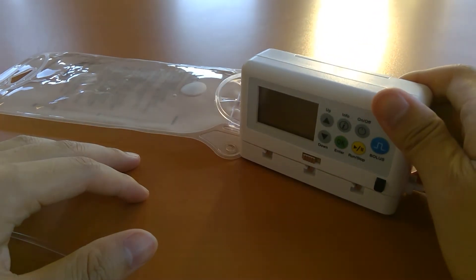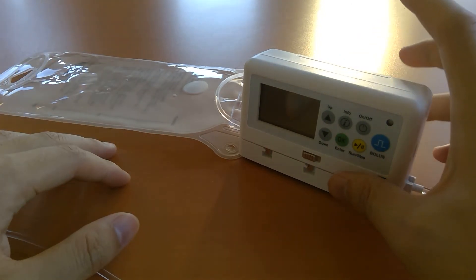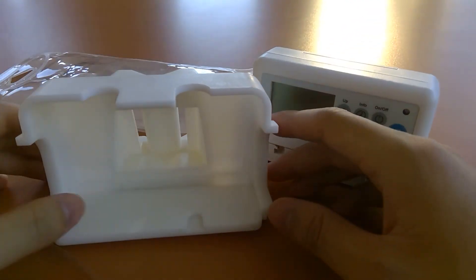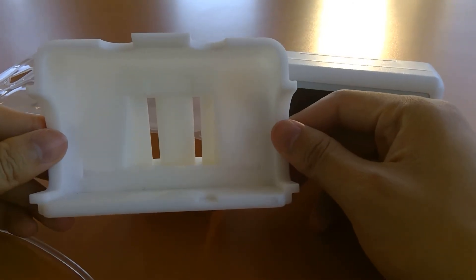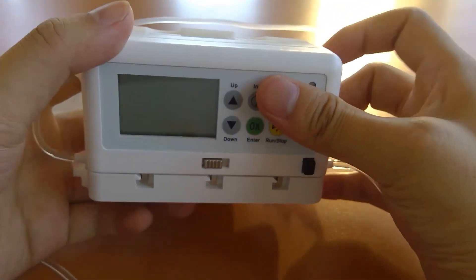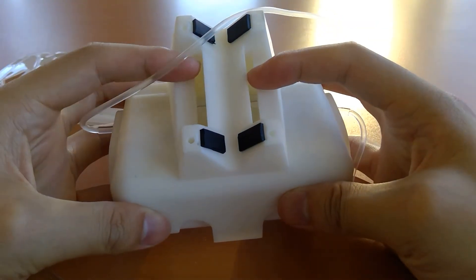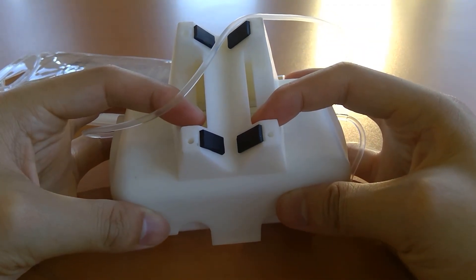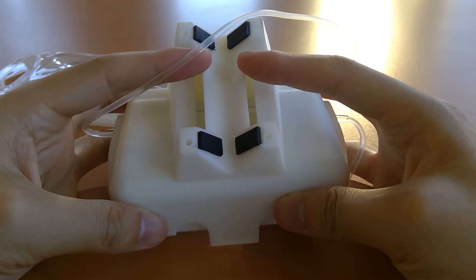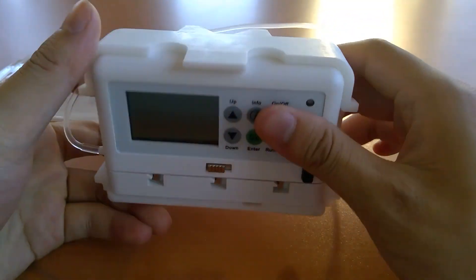Because the pump is so light, the impact weight is very low, so if you drop it or throw it against something it's not easily damaged internally. We also have a single pump IV clamp mount — the pump just slides in and fits snugly. On the back you can clamp to an IV pole with a hose clamp, zip tie, removable zip tie, or a metal screw clamp using the screws provided.